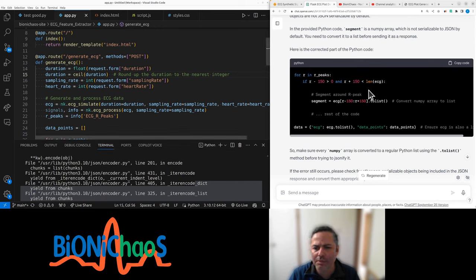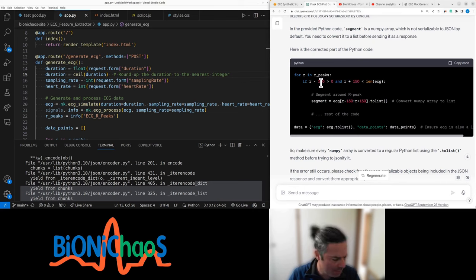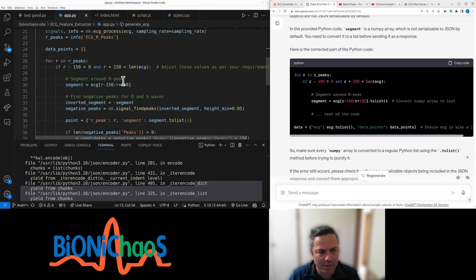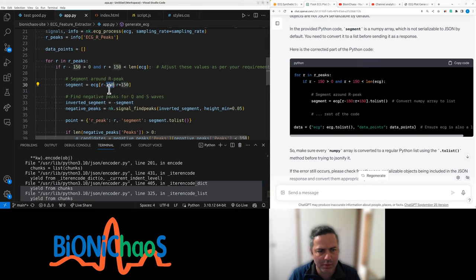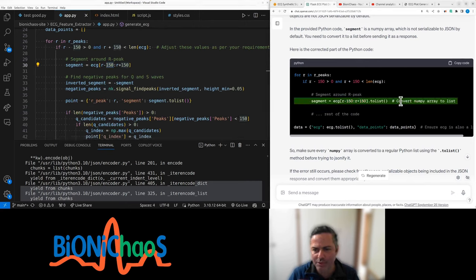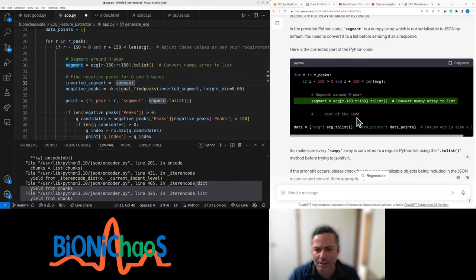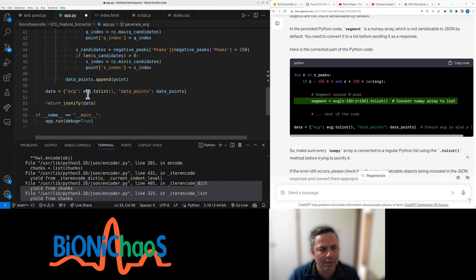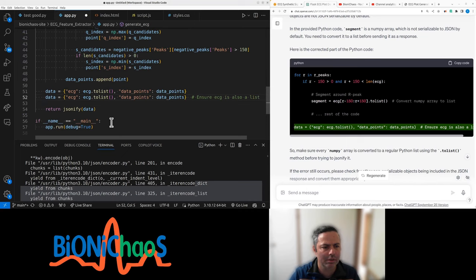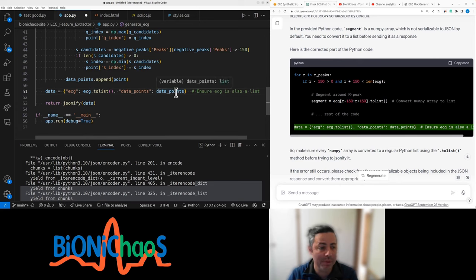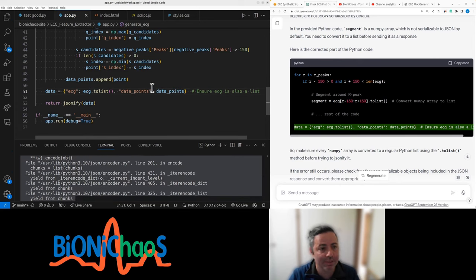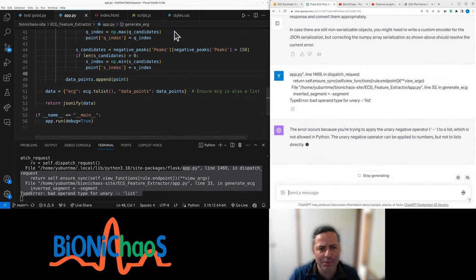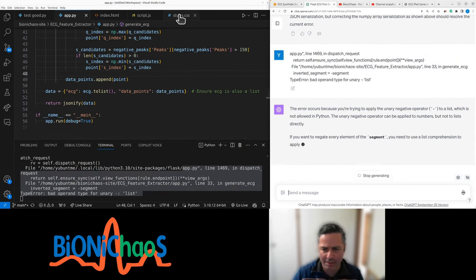We actually want to get rid of those magic numbers, turn them into variables so you can select them on the input parameters. But for now, convert numpy array to list. ECG to list. Isn't that the same? Why am I converting twice? Maybe it's not the same, I just can't see the difference.